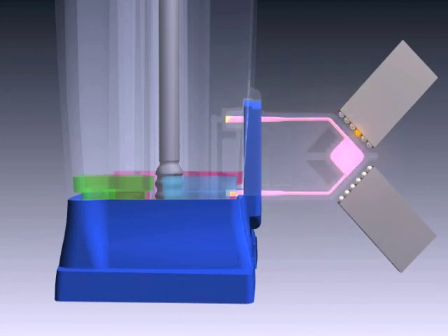Here we show six color detection in process. At this point, the assay is complete.